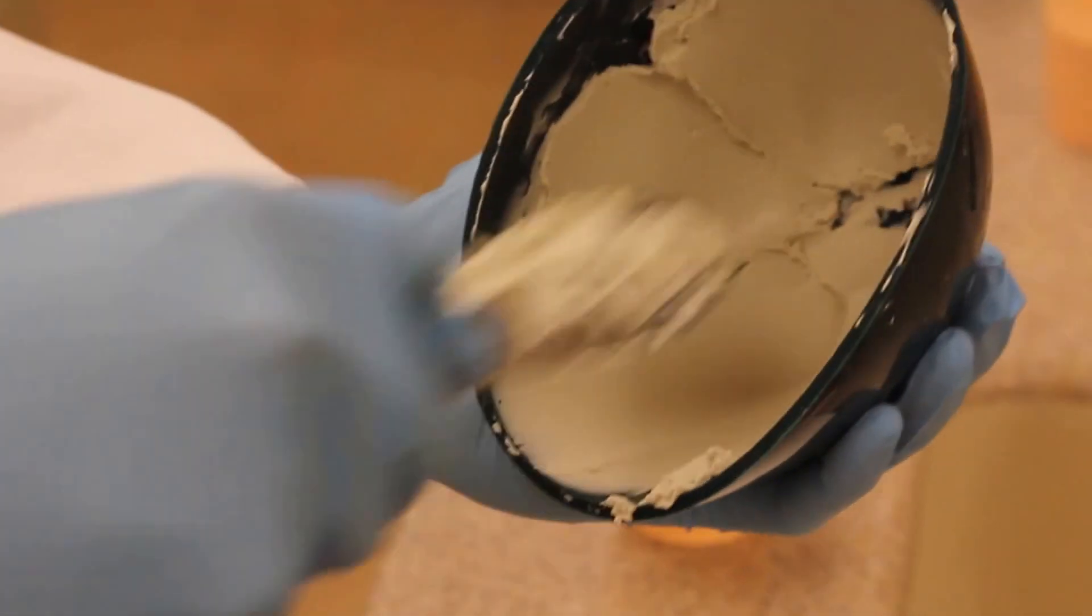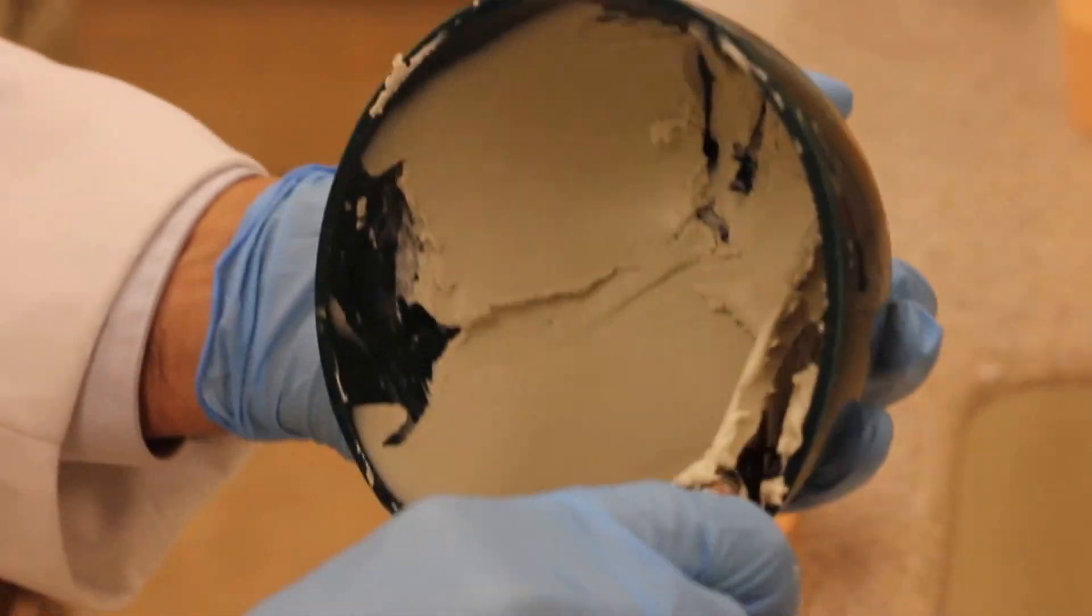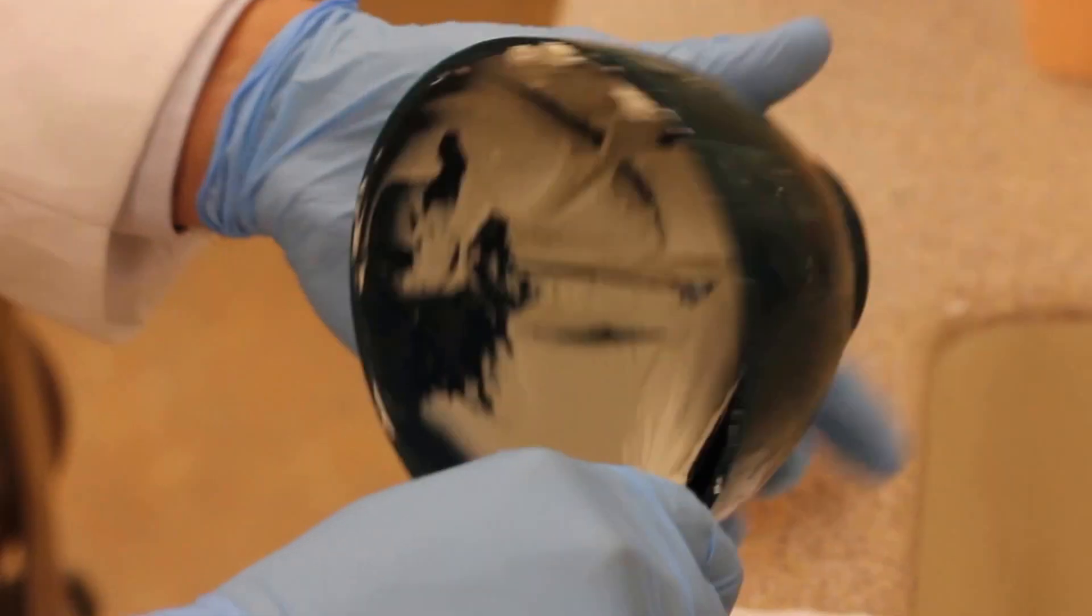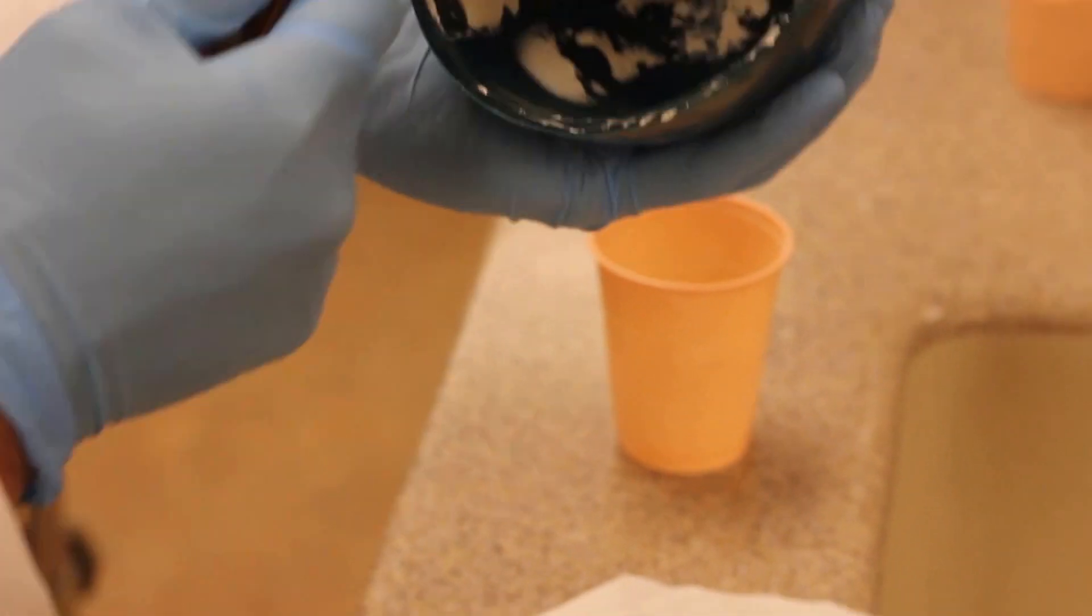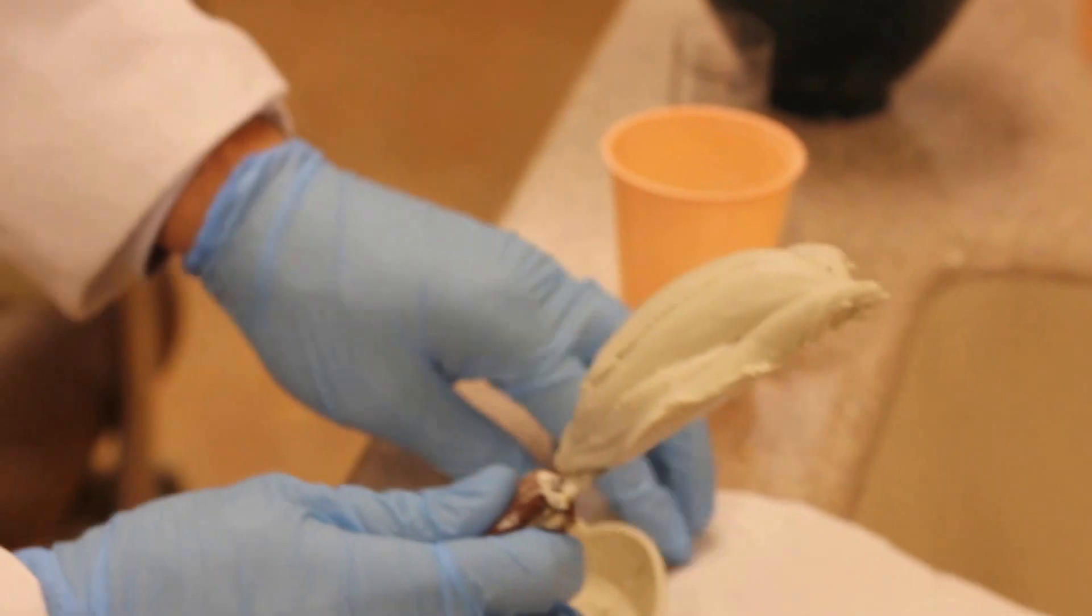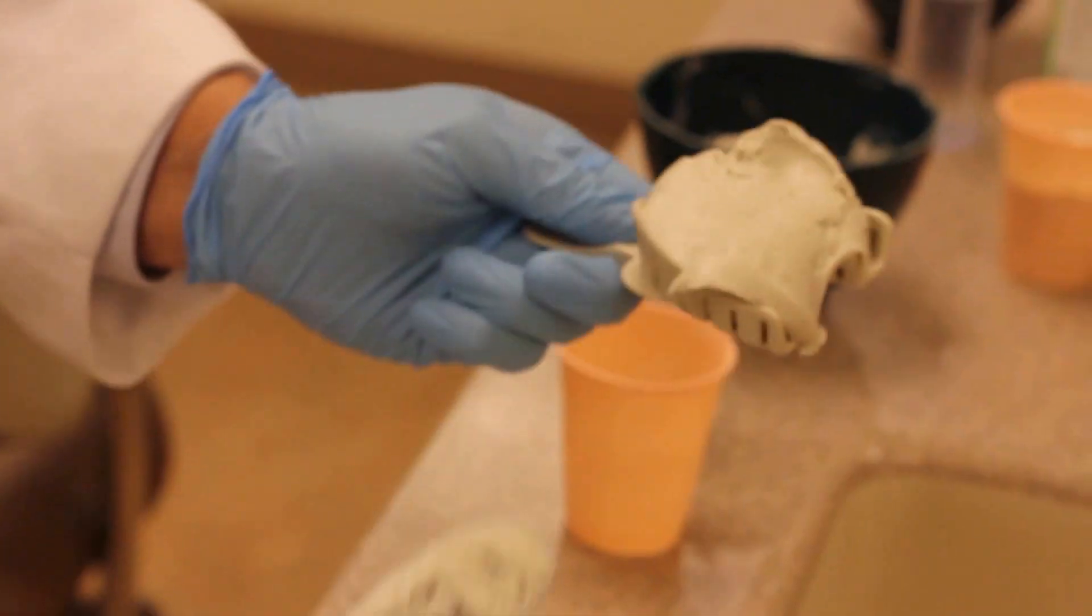And sometimes I'll kind of beat it down like this until it's nice and creamy. For the maxillary I like to gather everything up in one scoop and I'll load it in the tray like so.